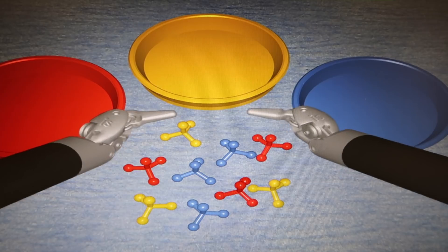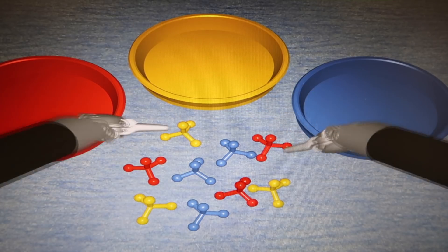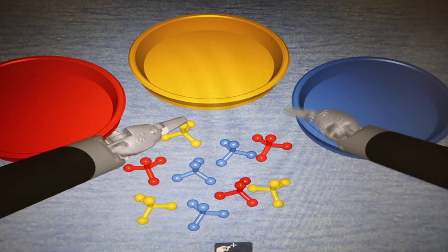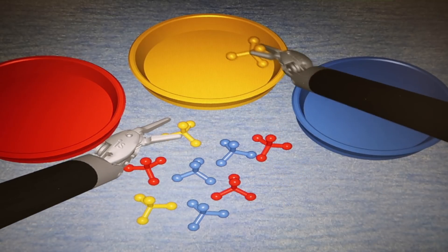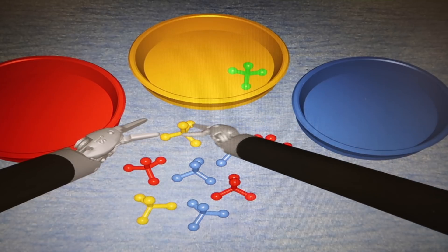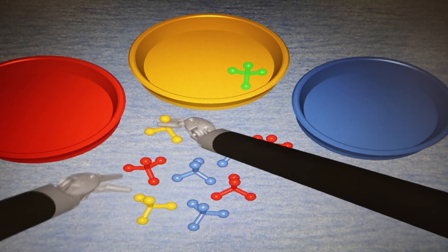Along with the modules that let you practice actual surgical techniques, there are a bunch of introductory playground modules like this one where the whole point is just to get the hand motions down and the wrist motions down.